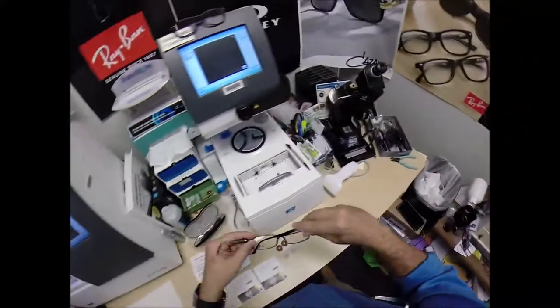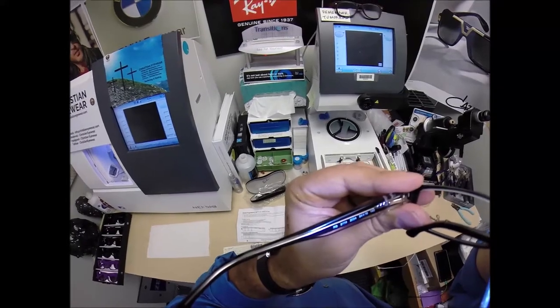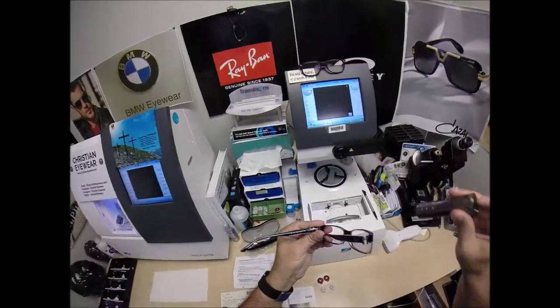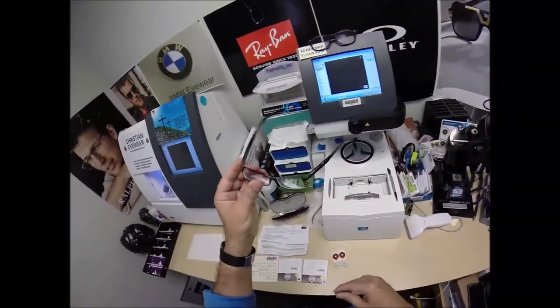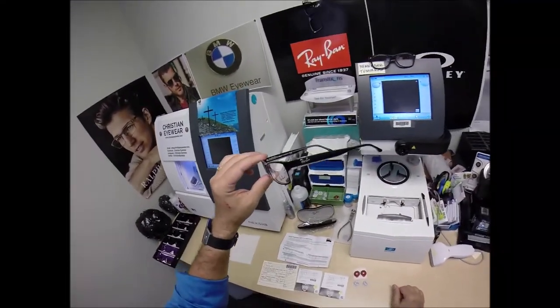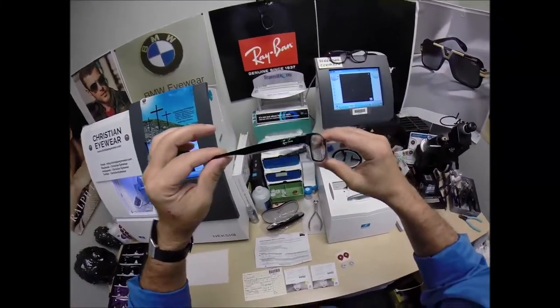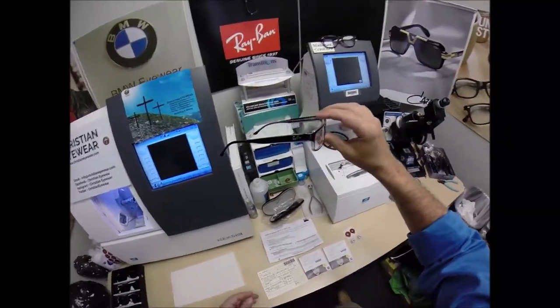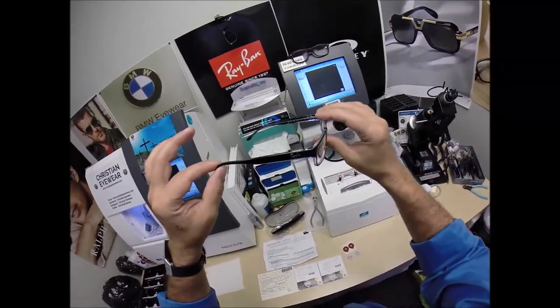I'm going to put that on there when I ship to you. This is the Ray-Ban 5114, color 2034, the black crystal in the 54 eye size, 18 bridge, 140 temple length. This comes in two sizes and numerous colors, all of which can be found on the website. But yeah, the black and crystal — classic combination — one of the more popular colors in the last few years versus just a solid shiny black. If you have any gray hair, that's really going to accentuate with it.